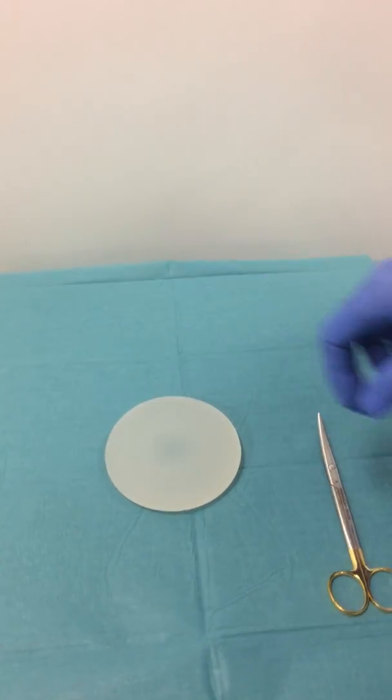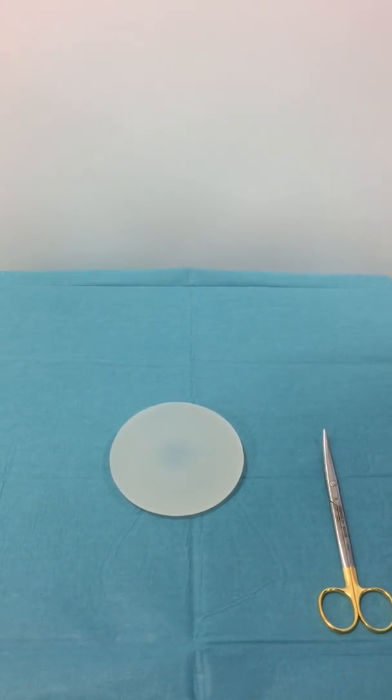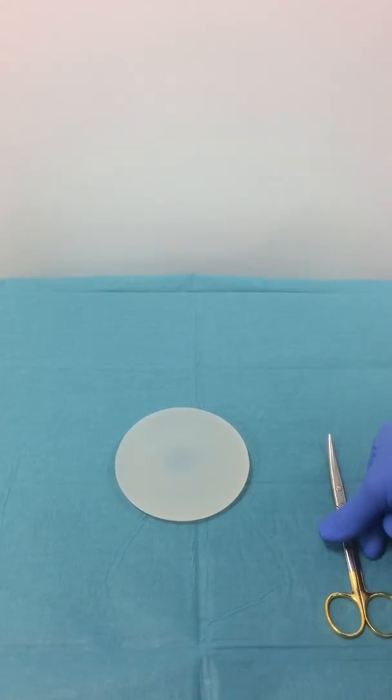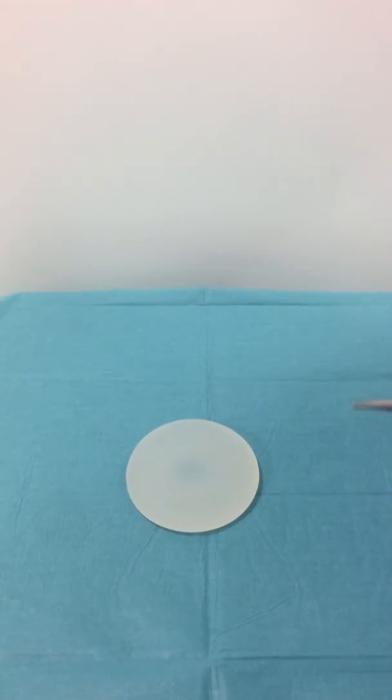A lot of people ask what's inside an implant and what does it look like inside. So I thought we'd cut it up, open and have a look.